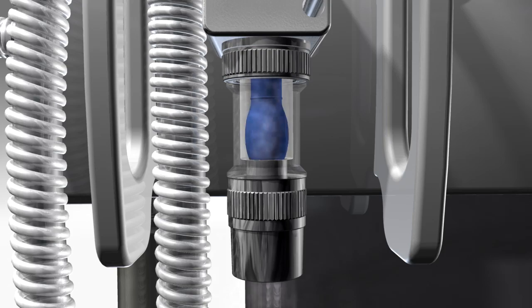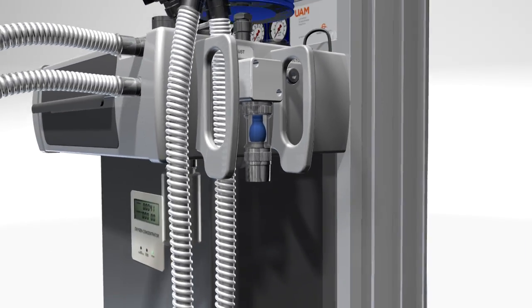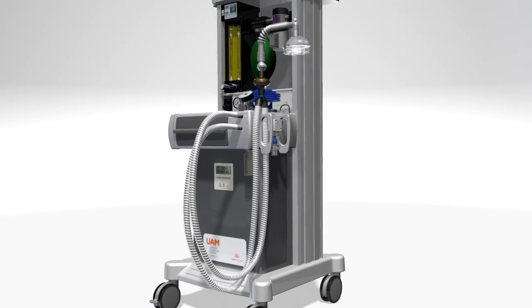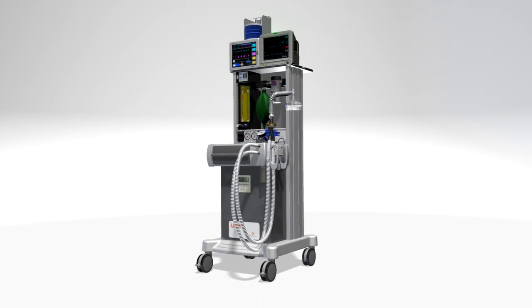The UAM always produces the correct supply of anesthetic gas for the patient in any environment where the surgery is performed.